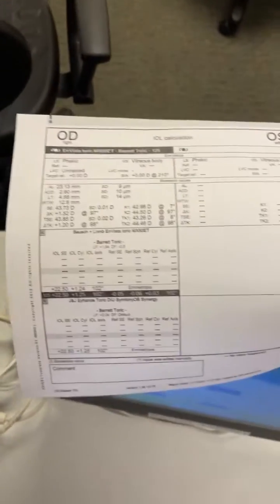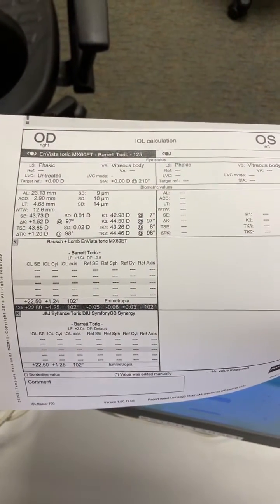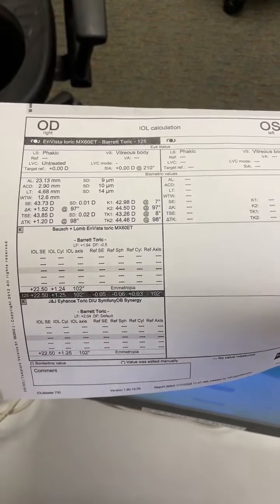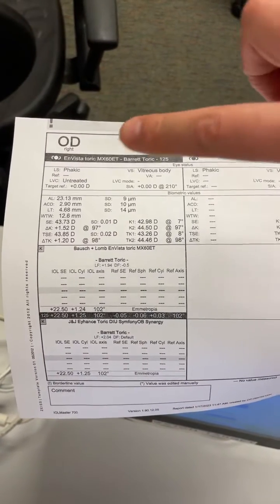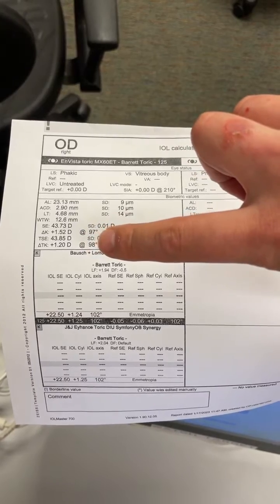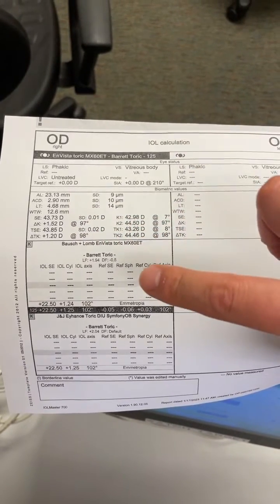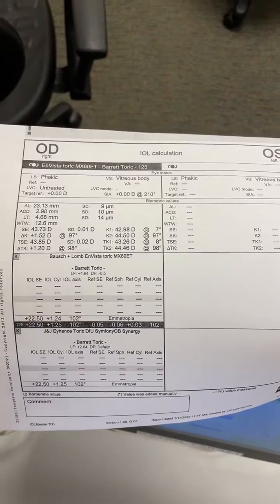Hi everyone. I just wanted to share something very interesting I learned today about the IOL Master. I often see on my IOL Master that the astigmatism doesn't produce a lens in the toric section.